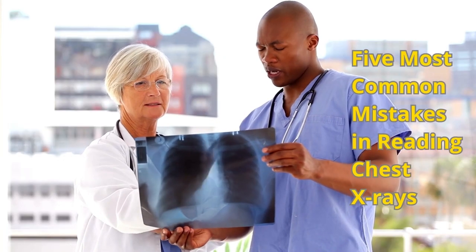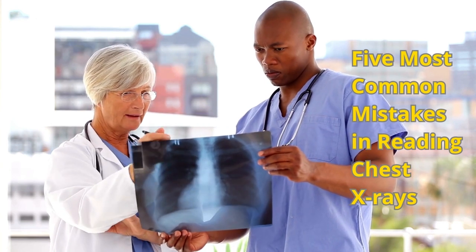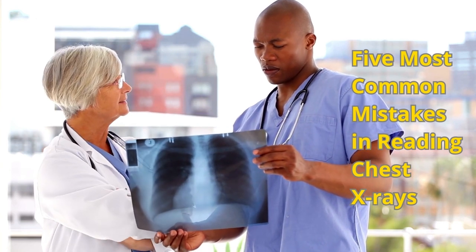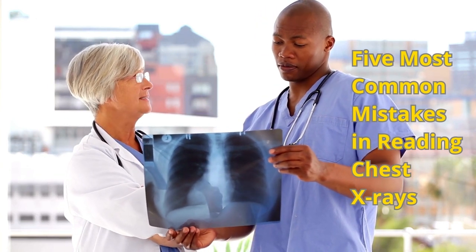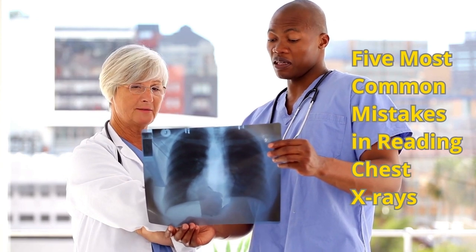Today, we are diving into the five most common mistakes in reading chest x-rays. Each error has the potential to alter the course of patient care and treatment.